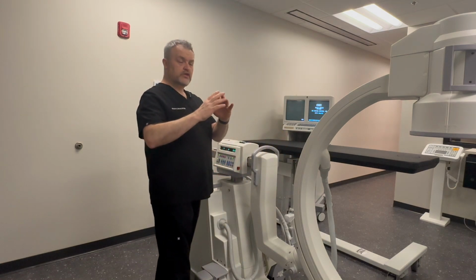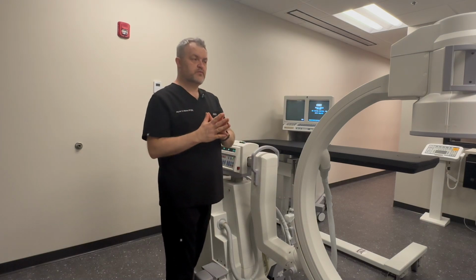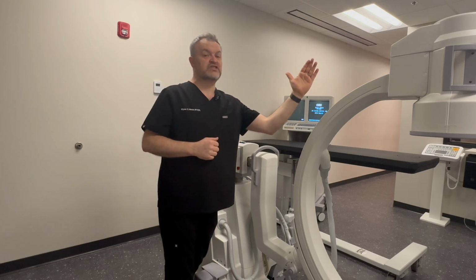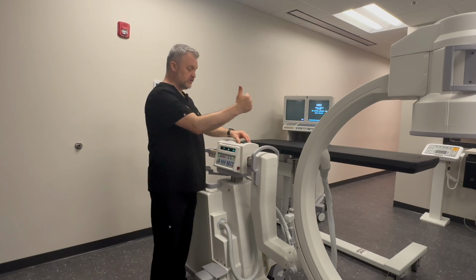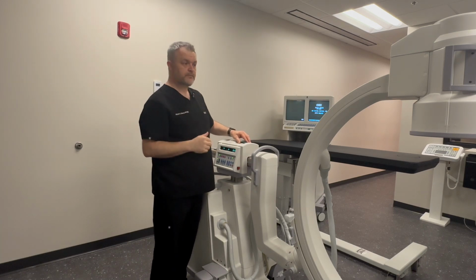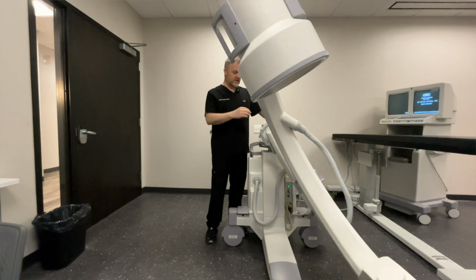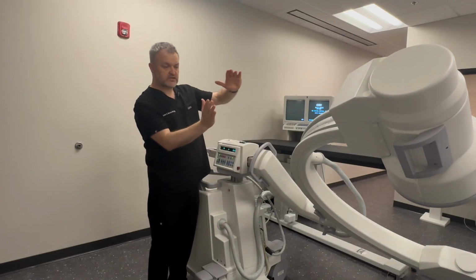So we want to use the term of tilt, and typically the convention would be tilt towards the head, is really meaning more the receptor moves towards the head. So in that instance here, if I wish to tilt to the right, then some machines have a manual lock. This machine here has an electronic lock, and that allows the machine to go ahead and sweep through.